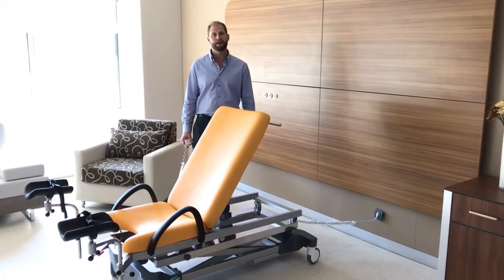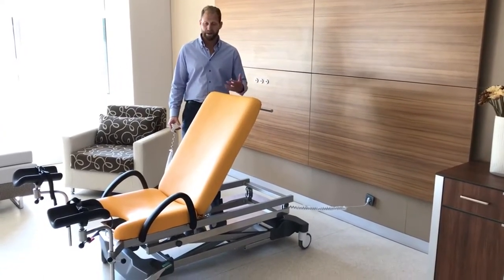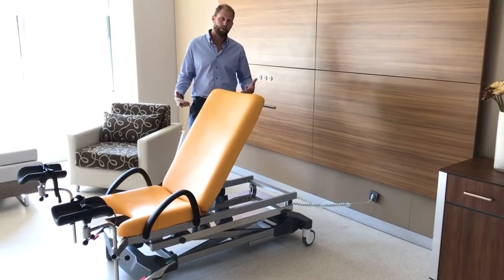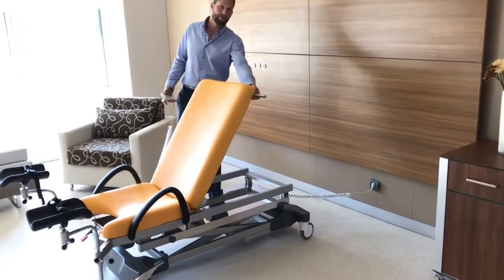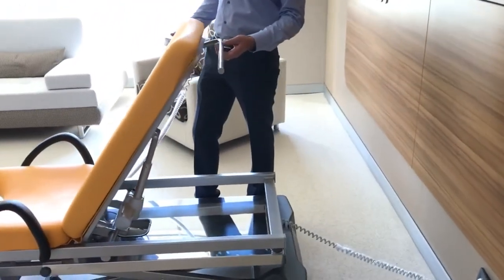Hello, my name is Jonathan Powell here with HNT Medical, showing you the gynecology chair of the 6JMM series. This is a scissor function gynecology chair. I want to point out a few key features. First of all, we have the table paper holder right in the back.